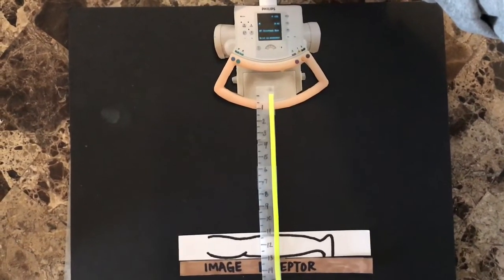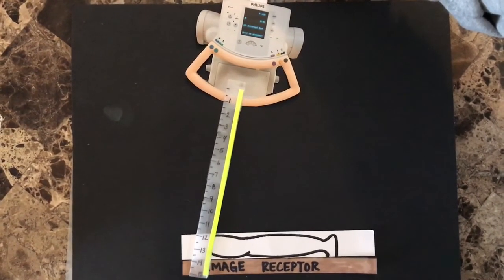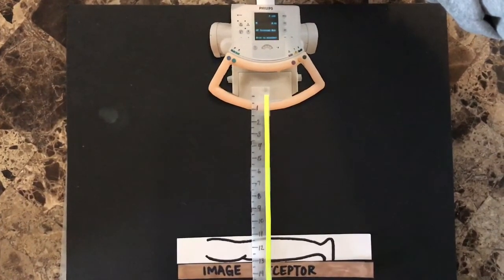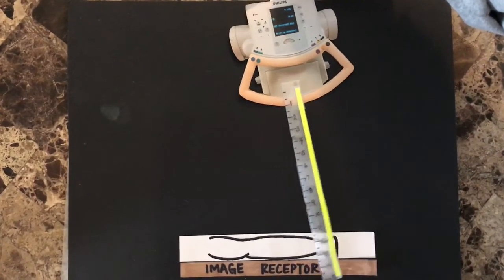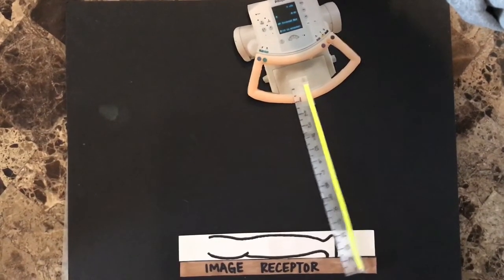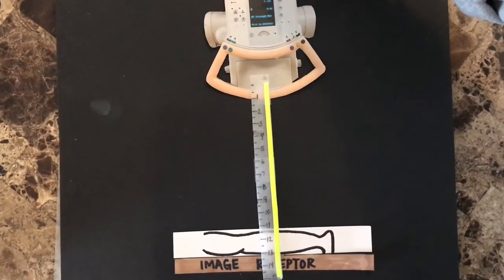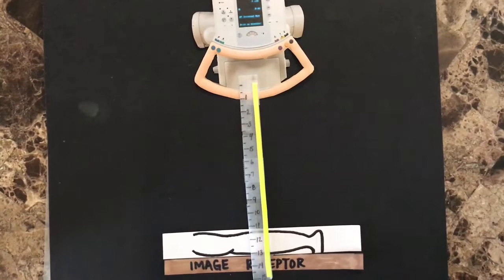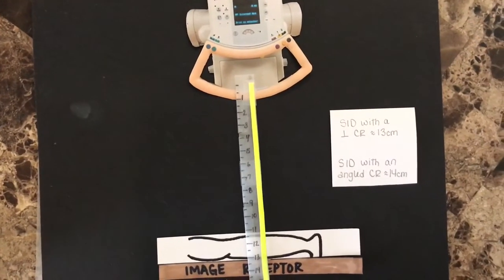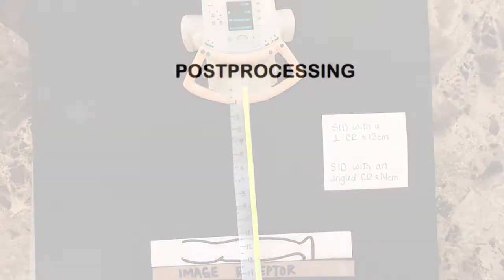In X-ray imaging, angling of the tube causes elongation. Since the tube is angling itself in both directions during a stitching exposure, slight elongation at both ends is to be expected. However, it's minimal. Just like in regular X-ray images, angling of the tube will also cause a slight loss of exposure because the angle creates a greater SID. Digital post-processing is able to compensate for a slight loss of exposure, but it's very important to remember to place thicker anatomy at the cathode end, usually the left side of the table.